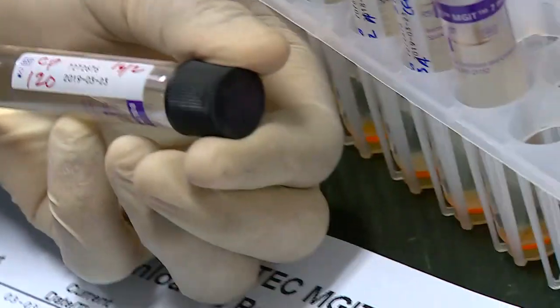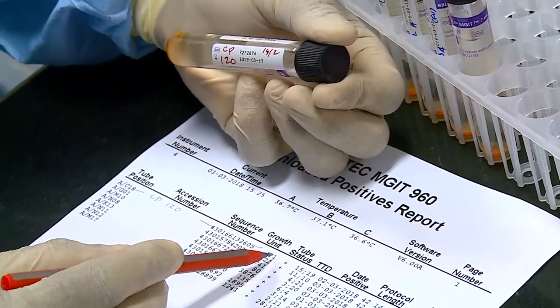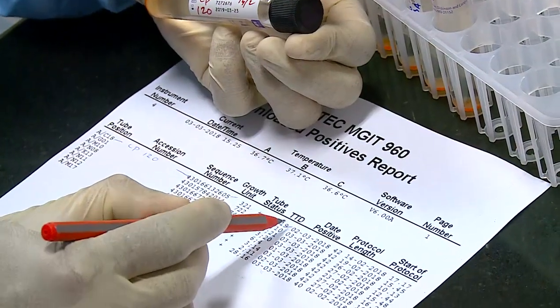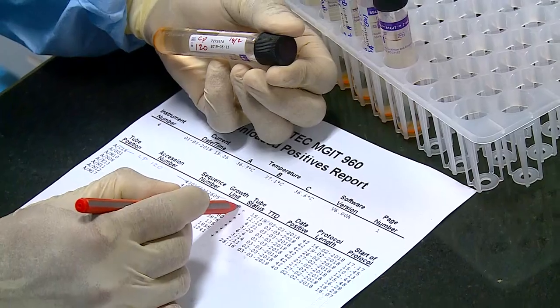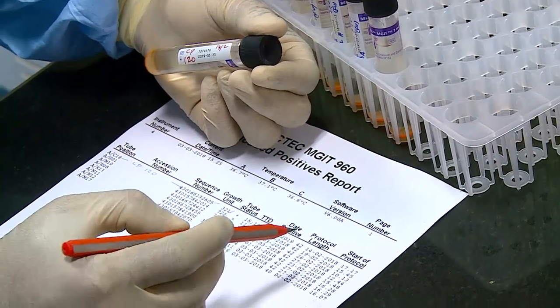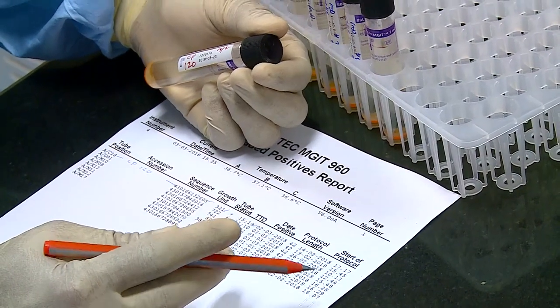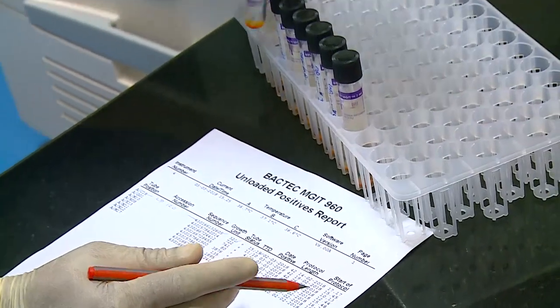This tube has completed 15 days and 19 hours of protocol with 321 growth units. The barcode number on the printout is cross-checked with that on the tube, and the corresponding lab number is written on the printout. Once all the lab numbers are verified and entered, the cultures are subjected to identification and confirmation of growth.